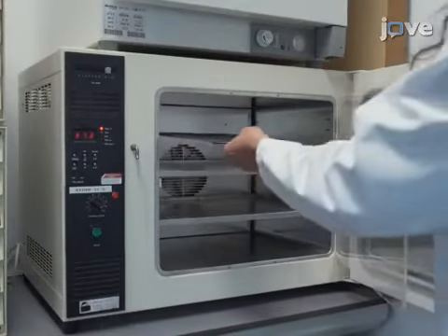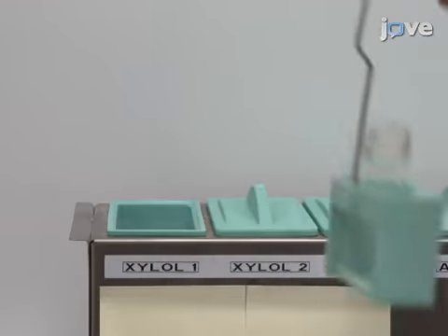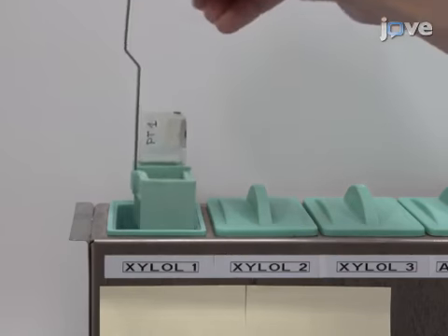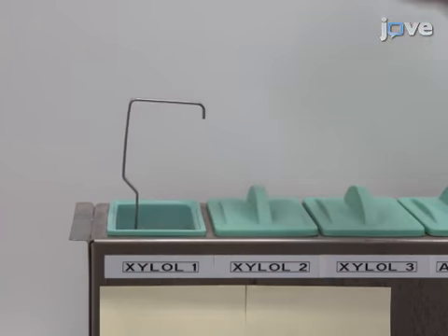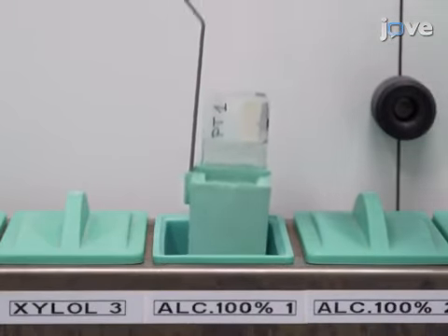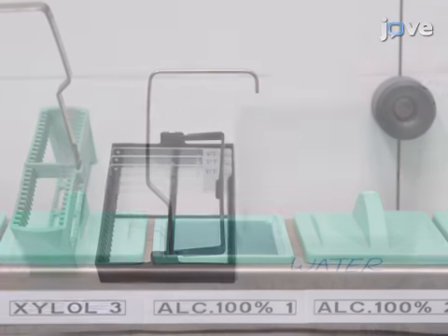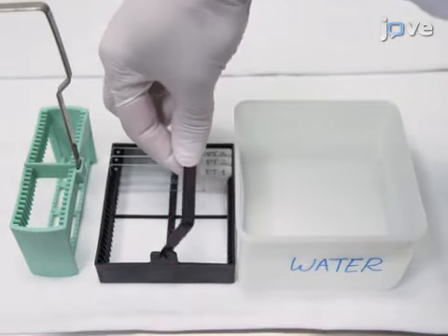After drying the samples overnight at 37°C, deparaffinize the tissues with 3 5-minute total immersions in 100% xylol. When the sections have been completely deparaffinized, rehydrate the tissue samples with 3 descending ethanol immersions, followed by a 5-minute wash in deionized water.